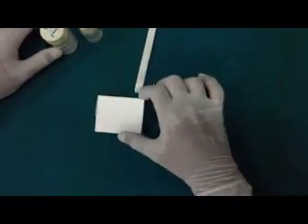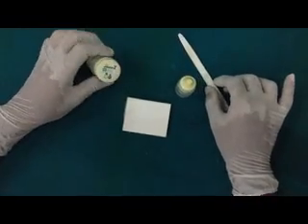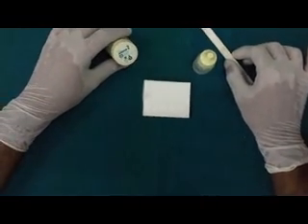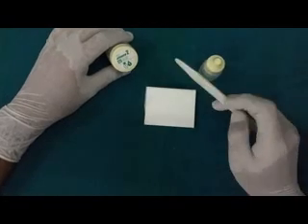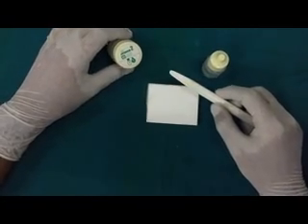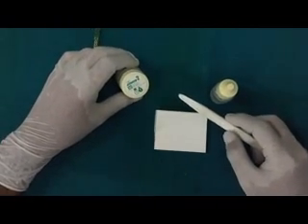Now let's start with the manipulation of this material. Every restorative material manufactured has its own proprietary method. So we must always follow the manufacturer's instructions. It's always mentioned with the material.